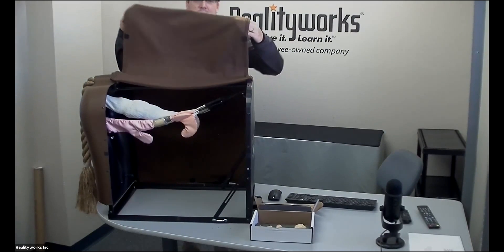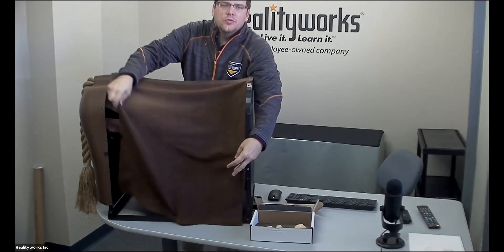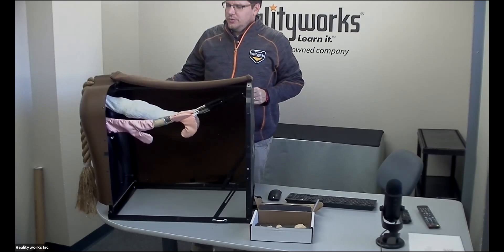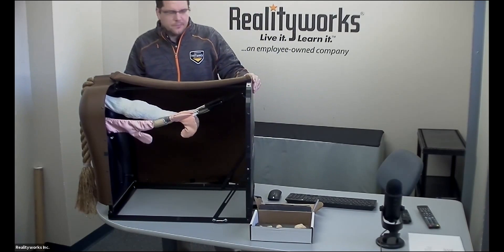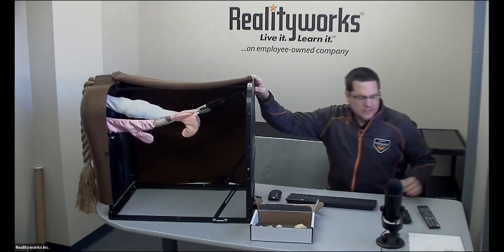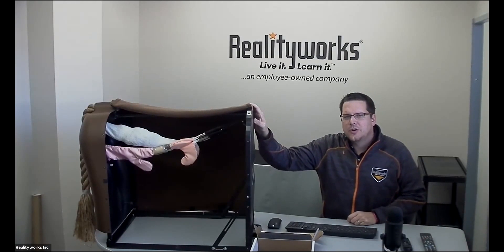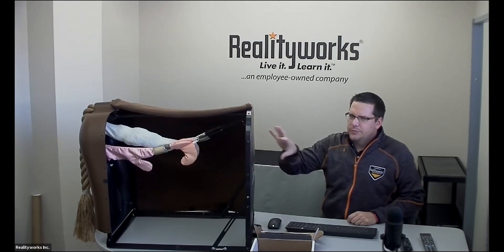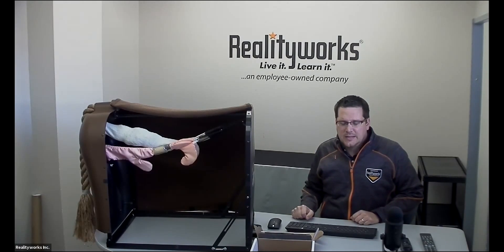It is the hindquarters that has a removable hide so you can see inside the reproductive tract and the digestive system as well. This product is collapsible — it can fit right onto the table or desk, and it allows you to move it from classroom to classroom or have students use it as they need it.